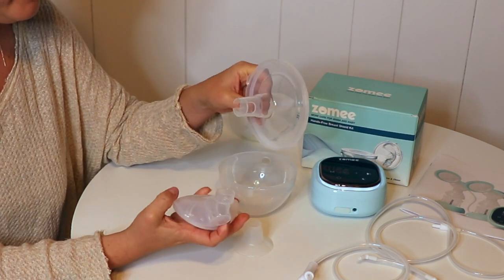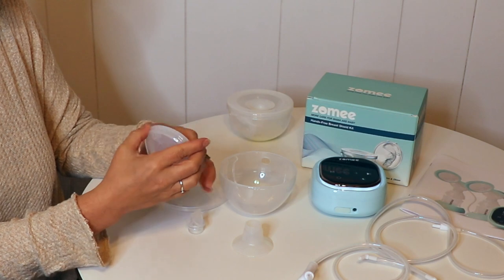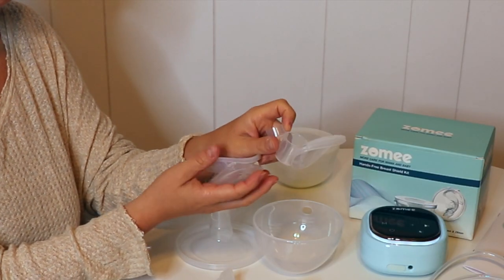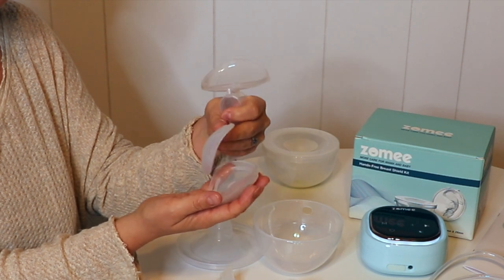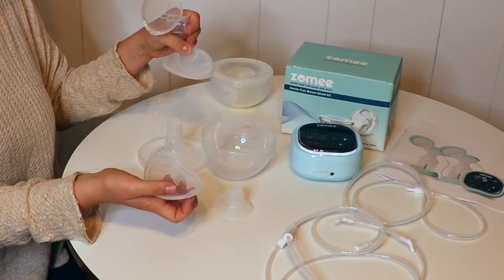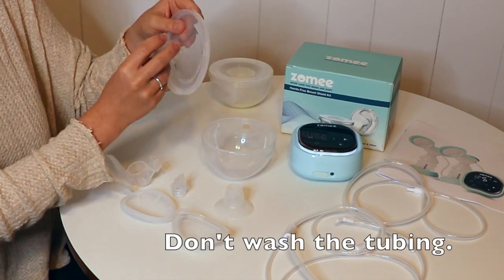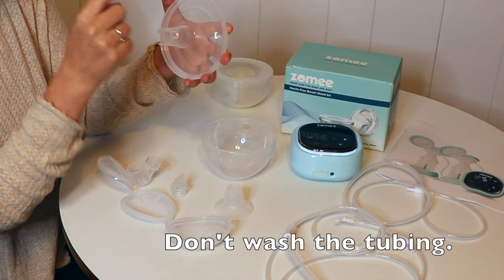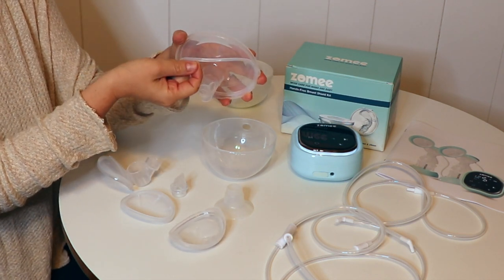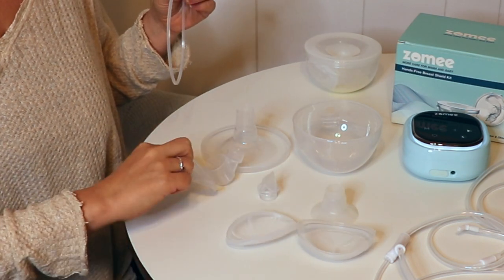It's really hard to get off but it does come off. So the flange comes off and then you have this piece which has a diaphragm inside, which causes additional suction and prevents milk from back-flowing into your pump. You are going to need to wash all these parts, and just like I showed you on the other flanges, there is a little seal around this flange with a tab that you pull off. So as you can see there are a lot of parts to wash here.